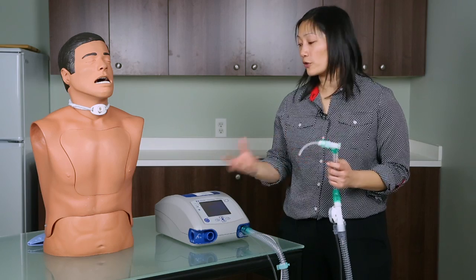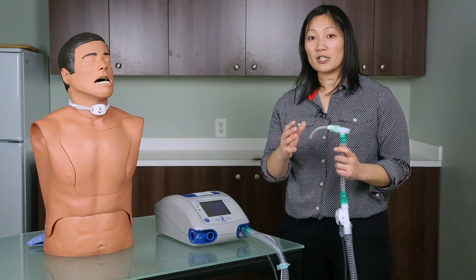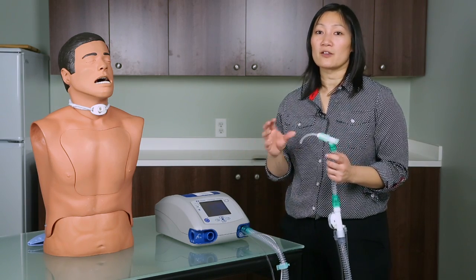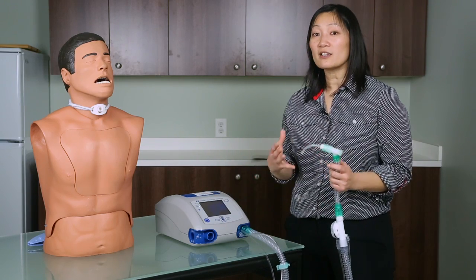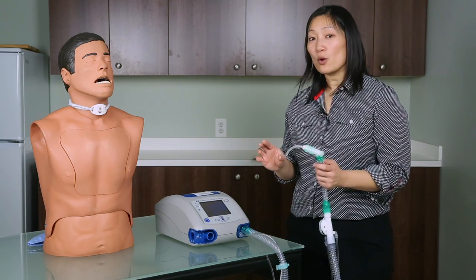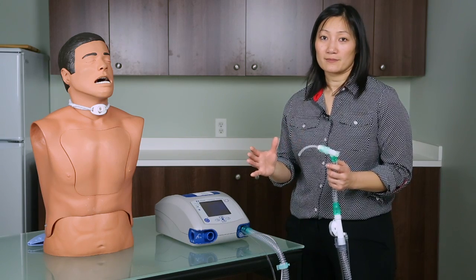Once you have the inner cannula attached to the distal part of your circuit, or your tracheostomy attached to the distal part of your circuit, simulate a dislodgement of the inner cannula or the tracheostomy — the ventilator should technically alarm. If it is not alarming a low pressure or patient disconnect, then you know the low pressure alarm is inappropriately set.